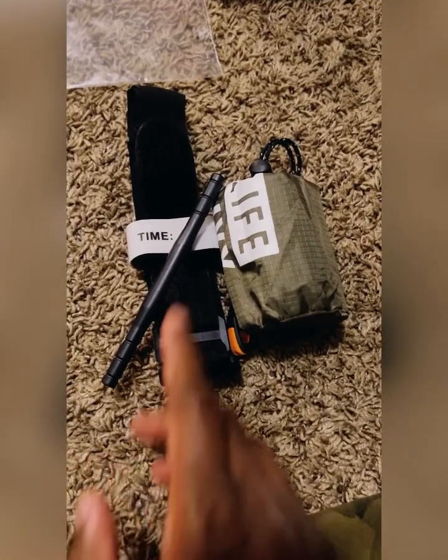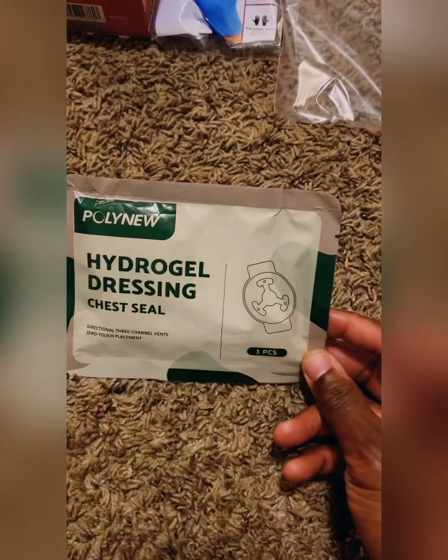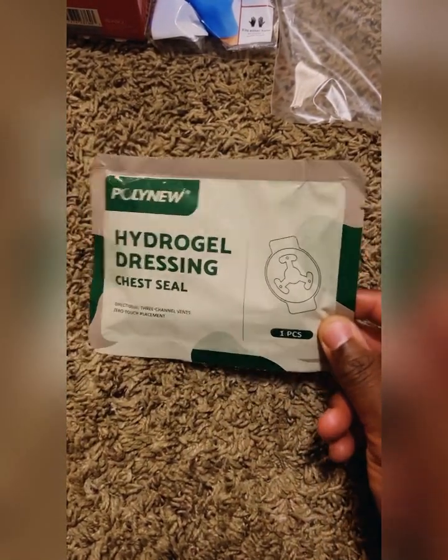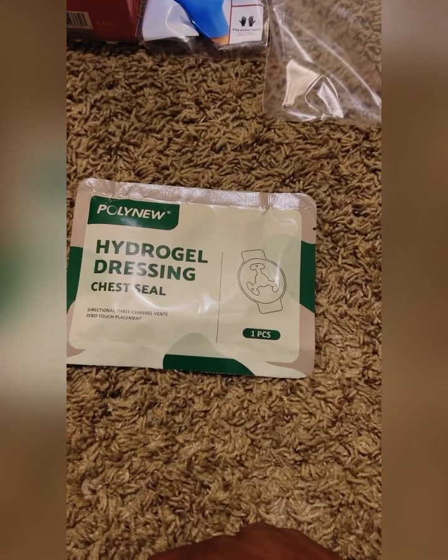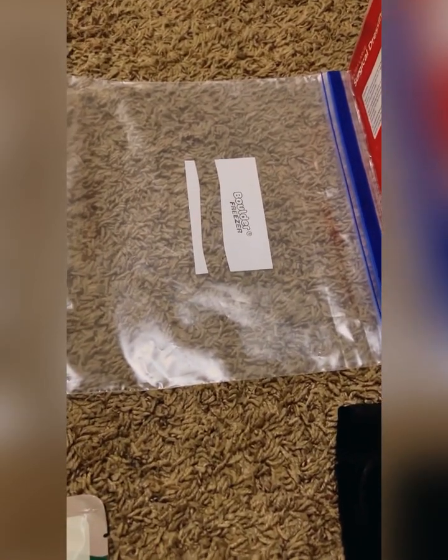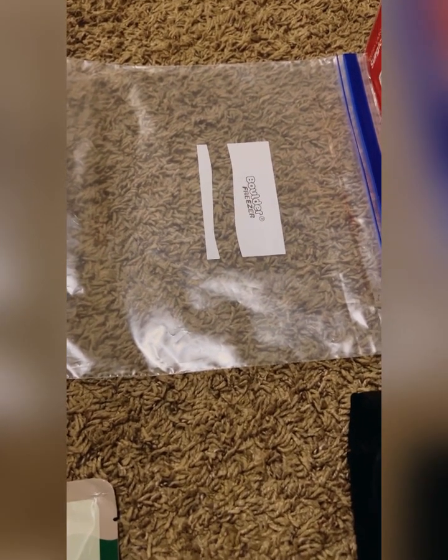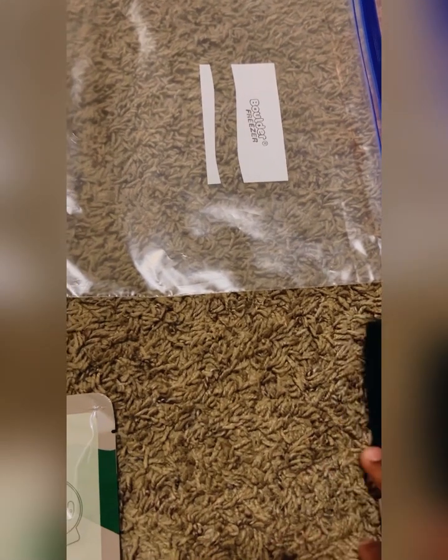I'm going to show you the quality of the Temu items. This is our haul from Amazon — the poly new chest seal. It comes in two; I put one in another kit and kept one here. They were only $11, so I might put both inside this kit. We're using a large Ziploc bag, which doesn't cost anything since we keep them around the house. I also have a Sharpie that cost nothing.